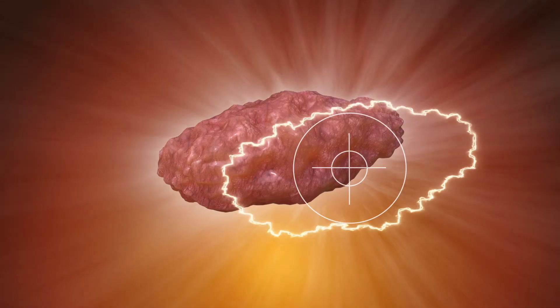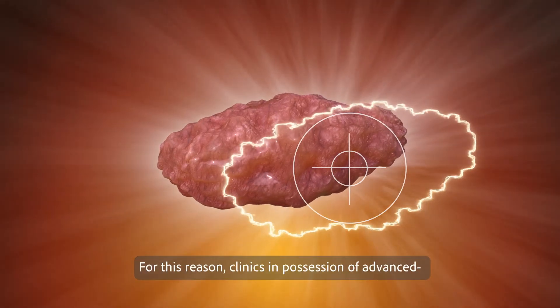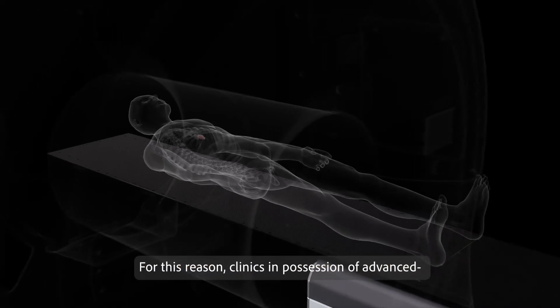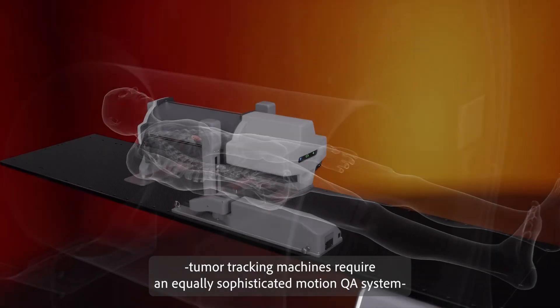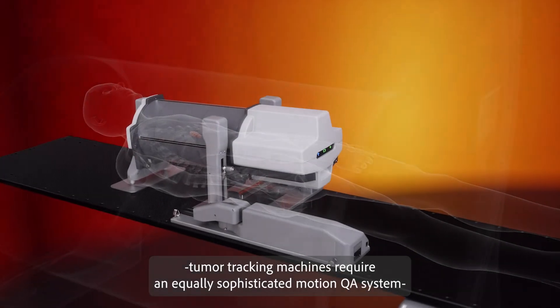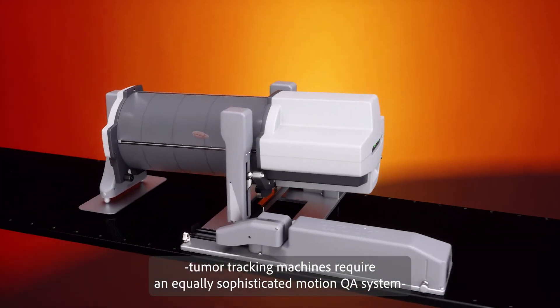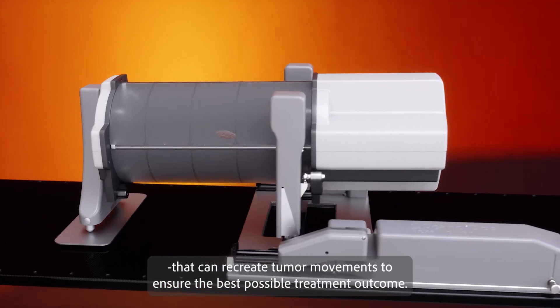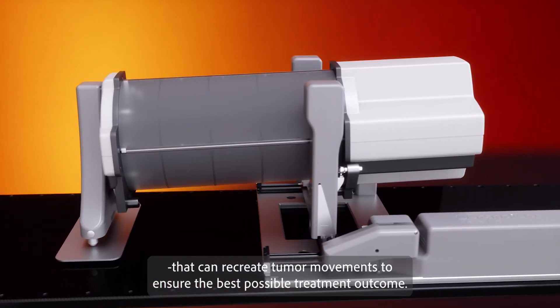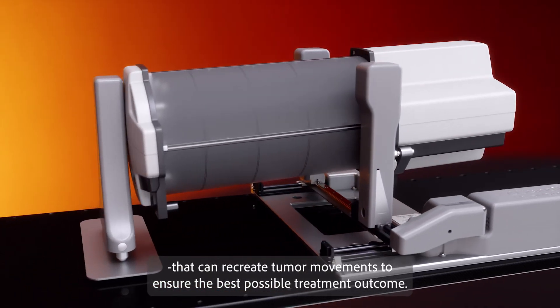For this reason, clinics in possession of advanced tumor tracking machines require an equally sophisticated motion QA system that can recreate tumor movements to ensure the best possible treatment outcome.